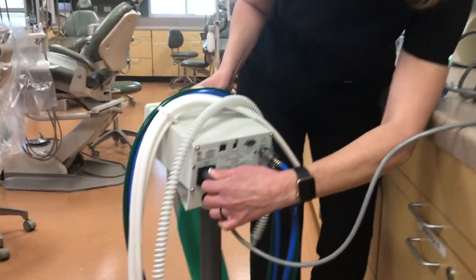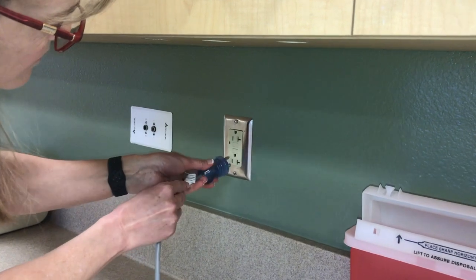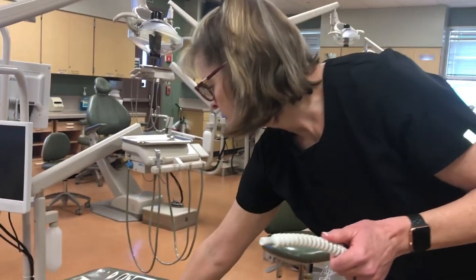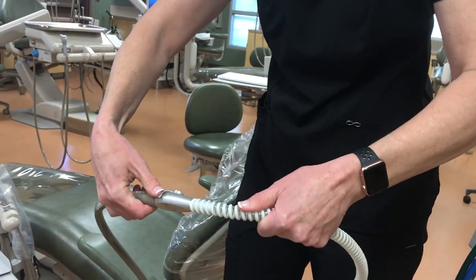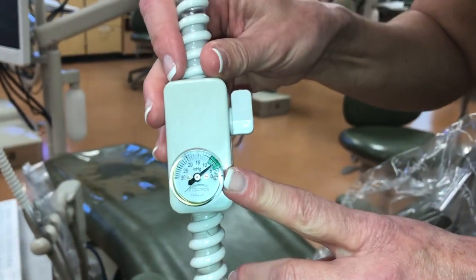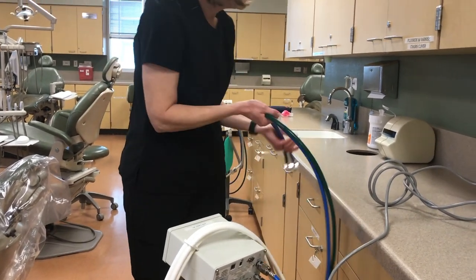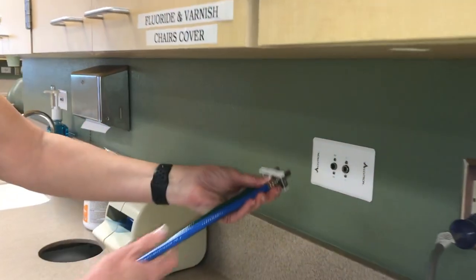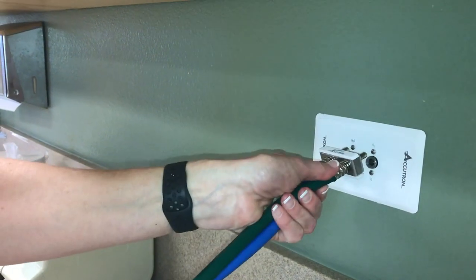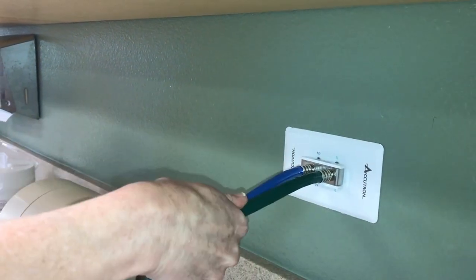To prepare the digital unit, you need to plug the power cord into the back of the flow meter and into the wall socket. You will then attach the vacuum cord to the high speed suction to connect the scavenging system. You will turn the suction on, hold the gauge up vertically, and check to see that it is in the green. You will then attach the nitrous oxide and oxygen tubing to the central wall plate. You can check the color code and pin size system to confirm you are placing it in the wall correctly. Press directly until you hear a click, and then gently pull back to confirm that it is secure.